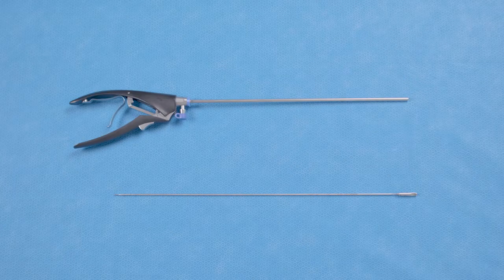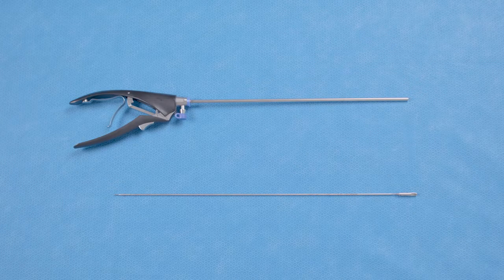The HiQ Plus Needle Holder is comprised of two components: the handle and the insert.